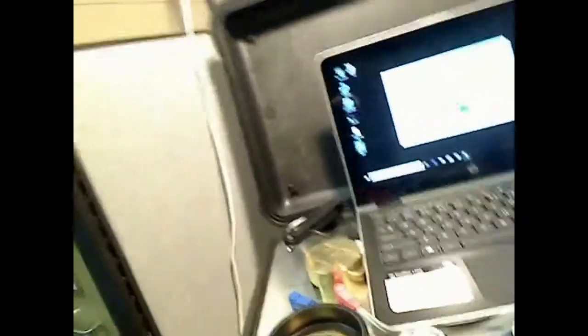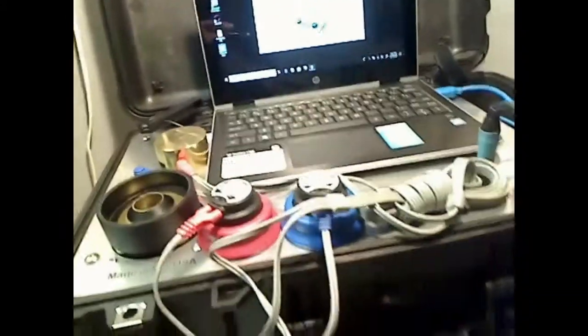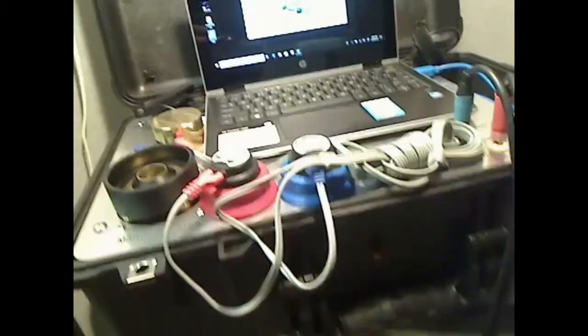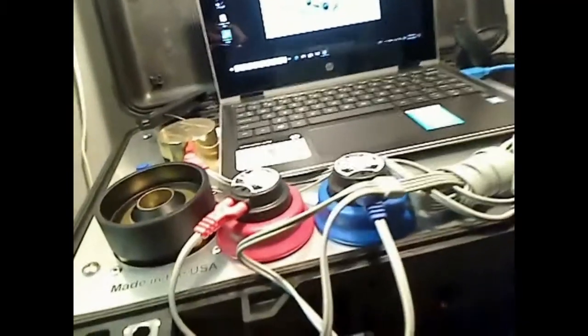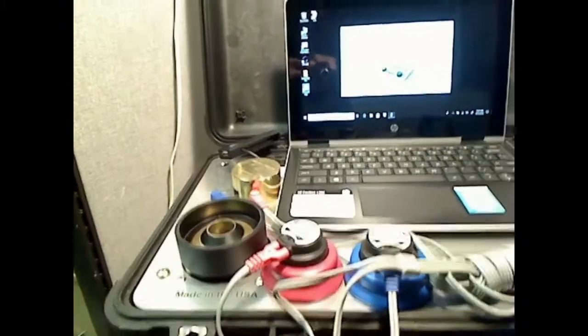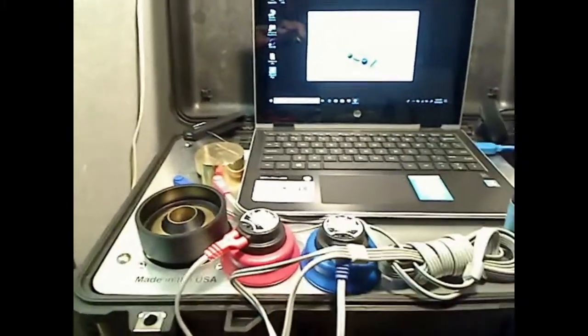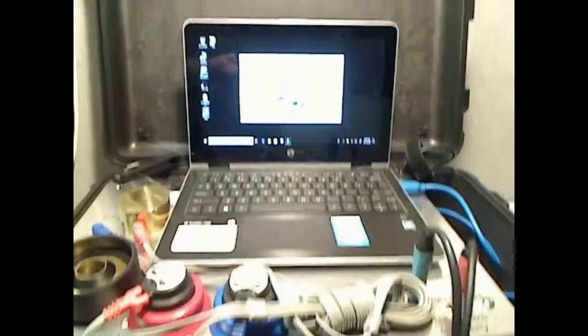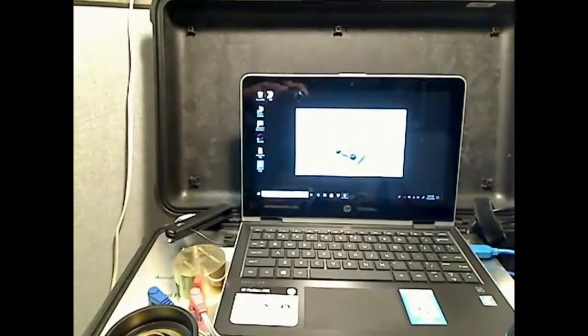I'll show you what it is right now. I'm just going to take this around over here and this is what we have. There's the ACS 102 coupler, weight, headphones, spots to plug things in, PC.